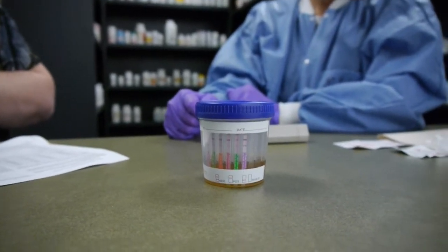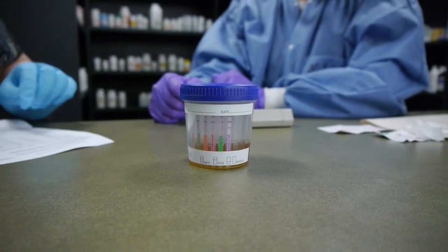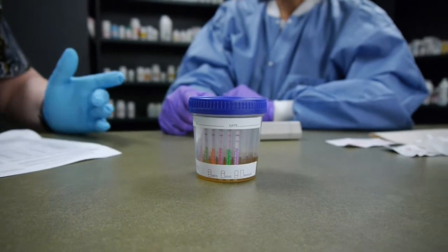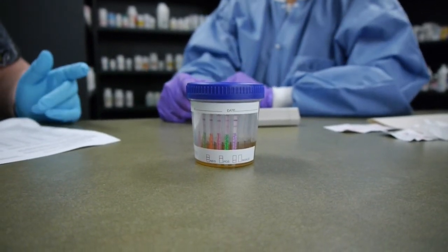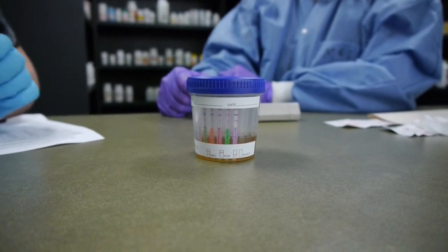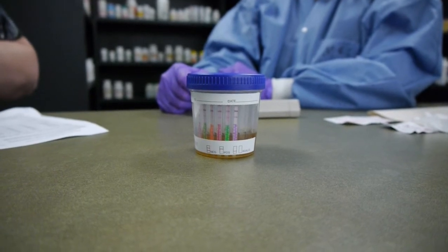Very important that you know what you're testing with, the stability and storage of your sample, how to collect that urine, how to actually do the test, and reading the results.